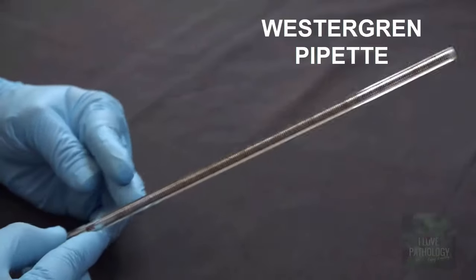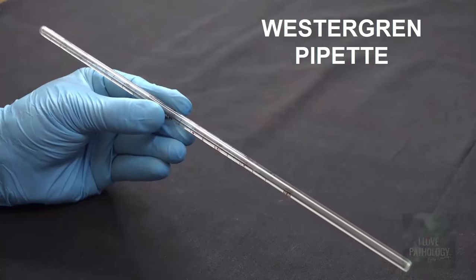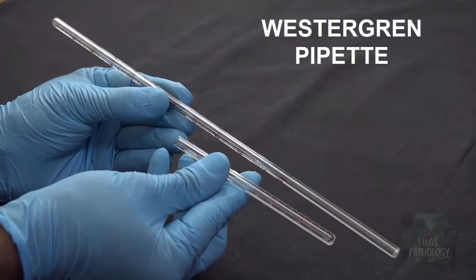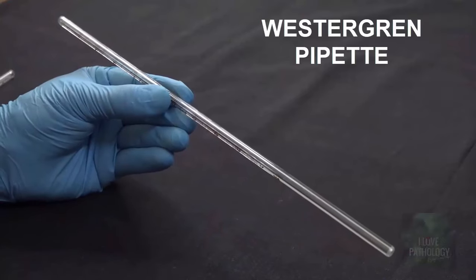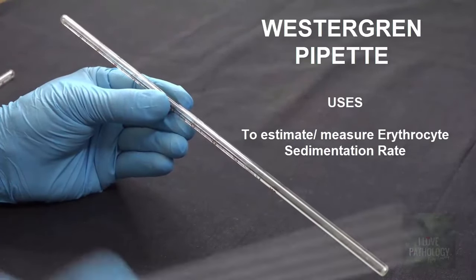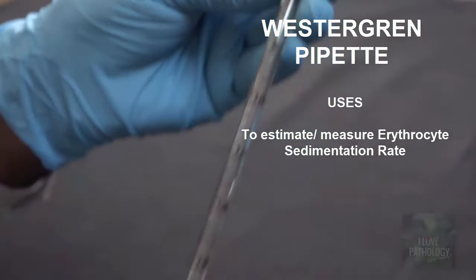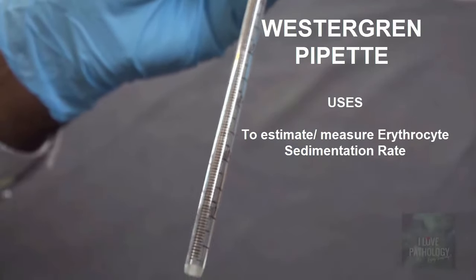This is a Westergren pipette, a pipette which has both ends open. This is 30 centimeters long. Just for comparison with Wintrobe's tube, one is a shorter tube and the longer one is the Westergren pipette. Use: to estimate erythrocyte sedimentation rate. The first 10 centimeters has no markings; the next 20 centimeters has markings from 0 to 200.